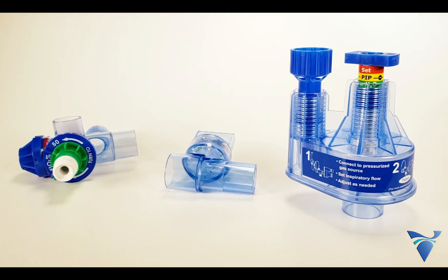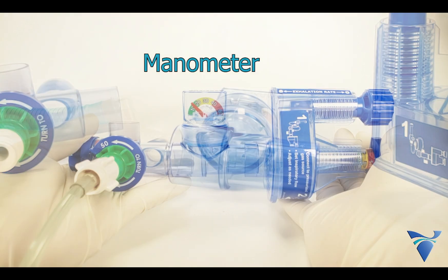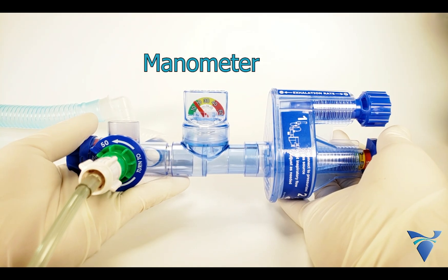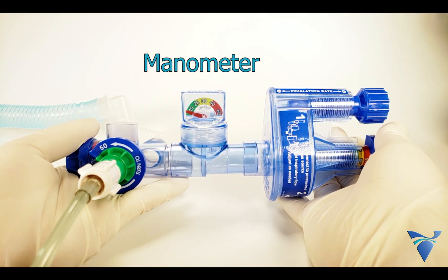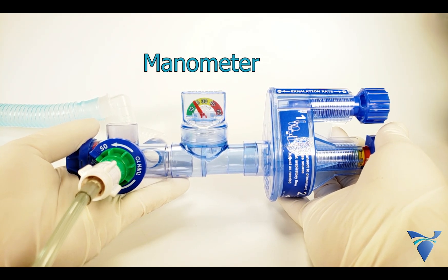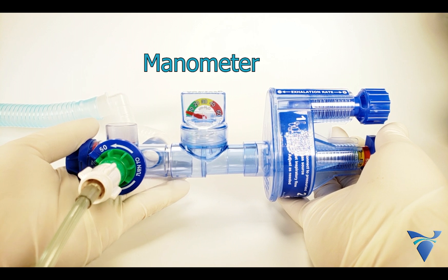The next component is the manometer. The pressure manometer allows the clinician to monitor the current PIP and PEEP settings being delivered to the patient.